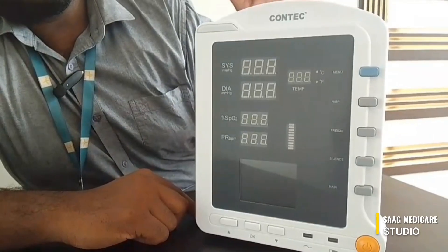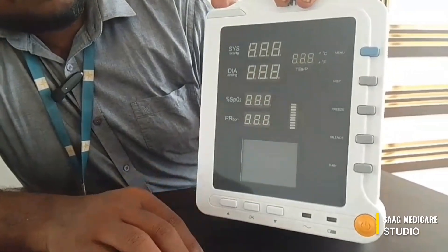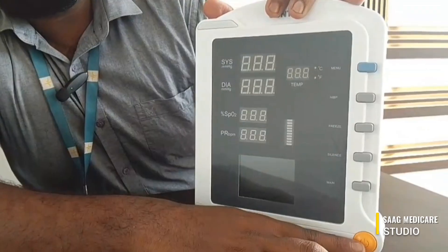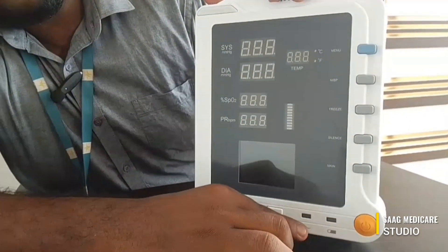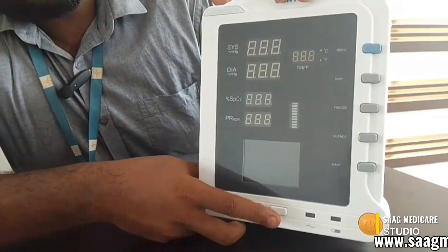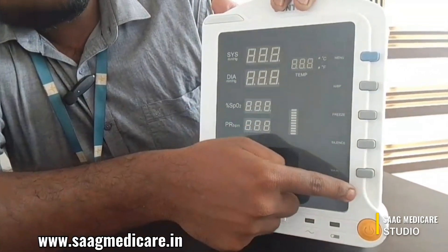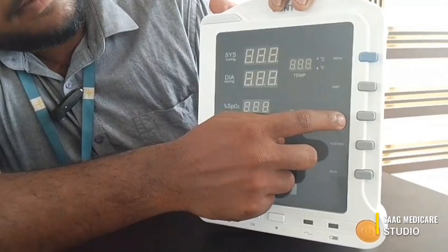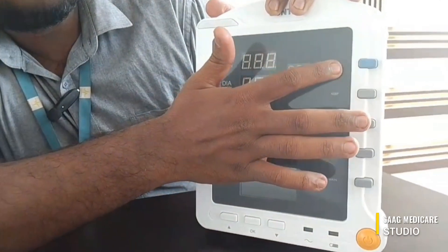This is our device, the Contec 5100. As you can see at the bottom you can find the power on/off button along with the battery indicator and AC indicator. These are the navigation buttons, and here you can find the main button, silence button, freeze button, NIBP button, and menu button.